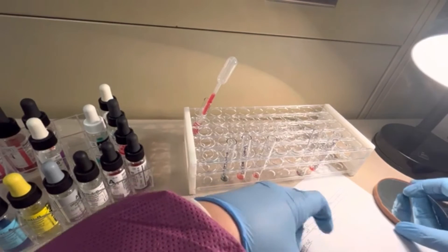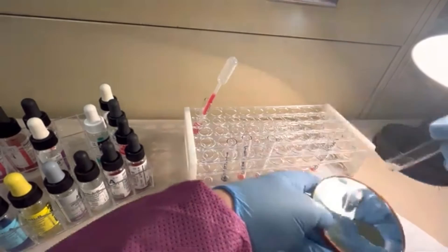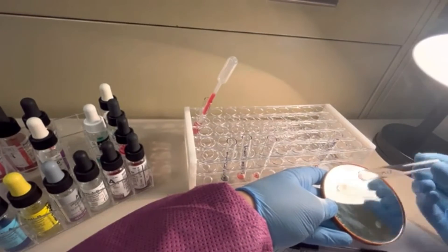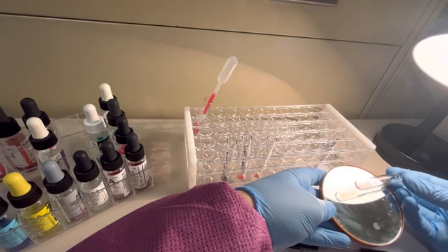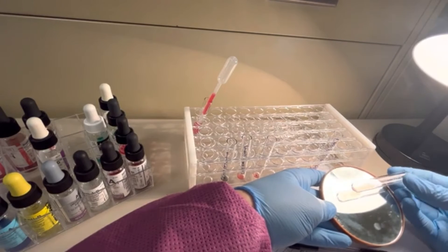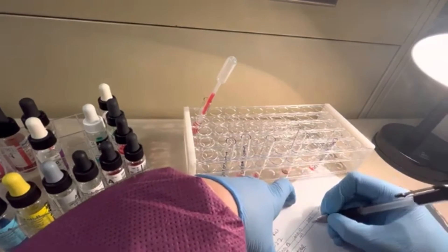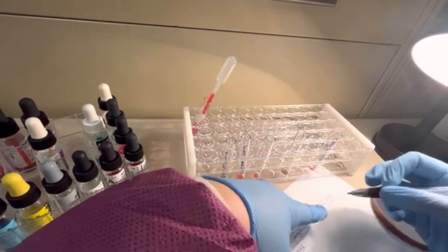Now let's take a look at their DAT. Okay, that looks negative. I'm going to put a negative for their initial DAT.